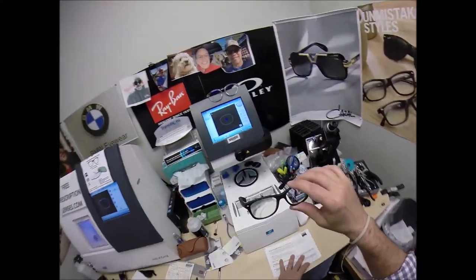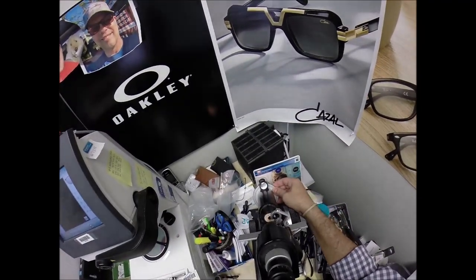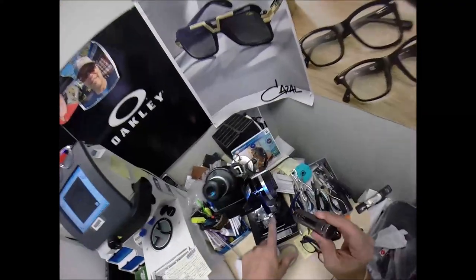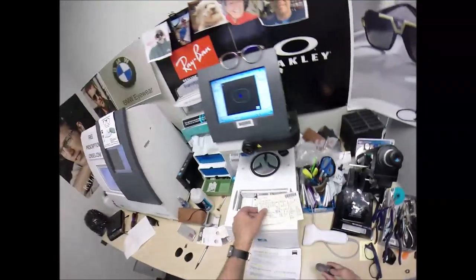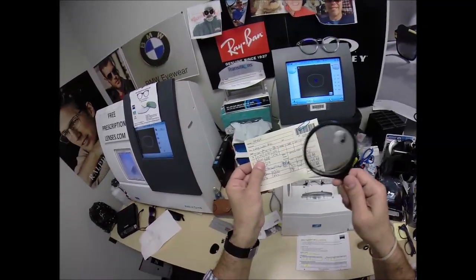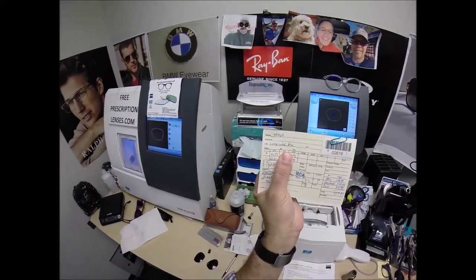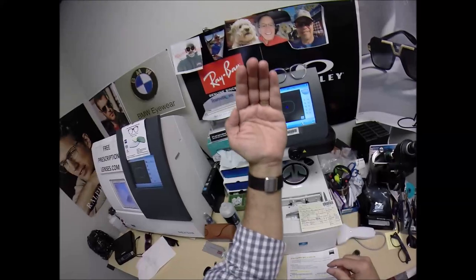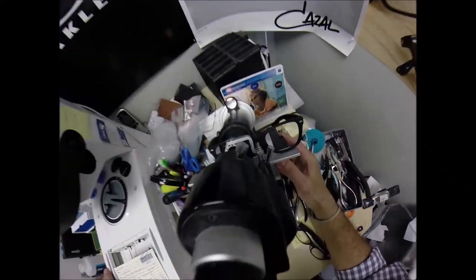I'm going to turn the axis wheel to 105, put your lens in above the black dot and read the prescription. I am getting plus 175 — that's because you are farsighted. Everything is much too small so your lenses magnify. Even for your distance you have a plus 175. You have two steps of astigmatism correction — plus 175 here, minus 50 here, and it's how we line up those two curves to the 105 meridian.